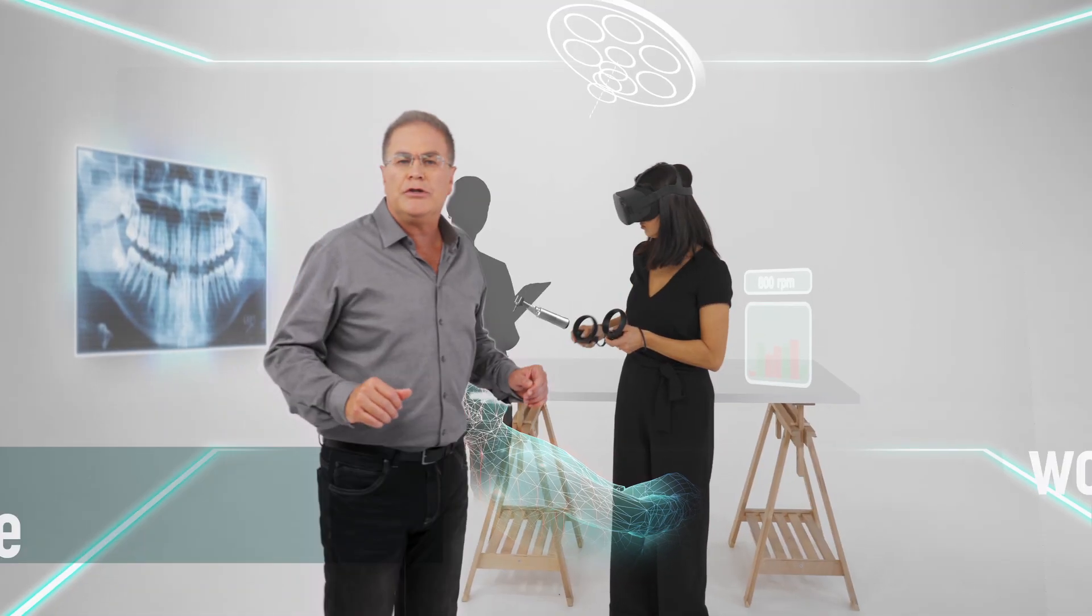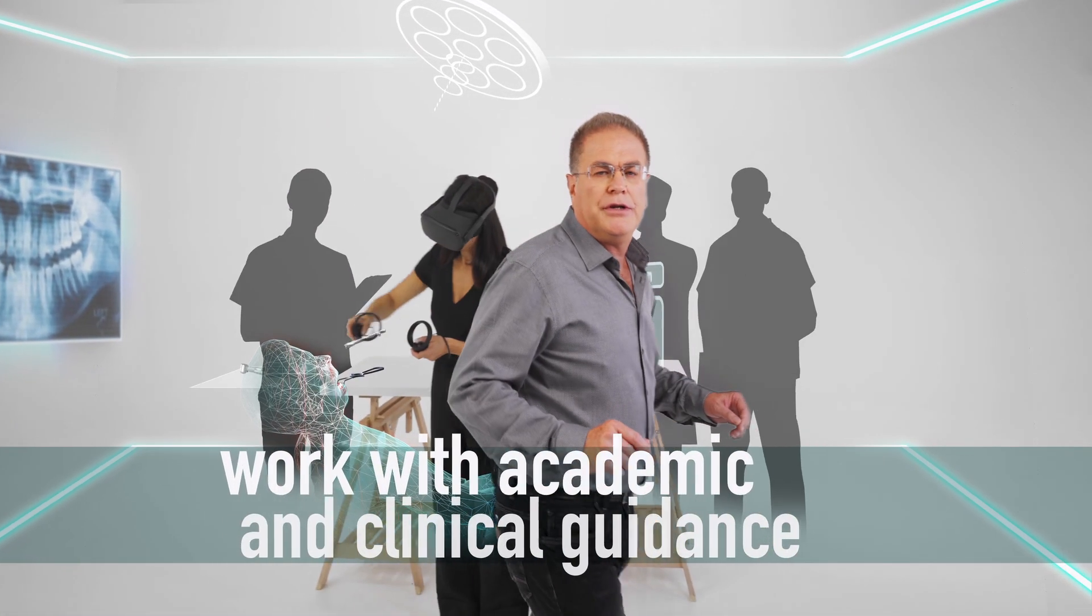Share remotely and simultaneously your operator experience with peers and mentors.